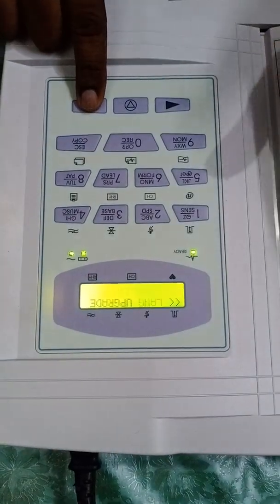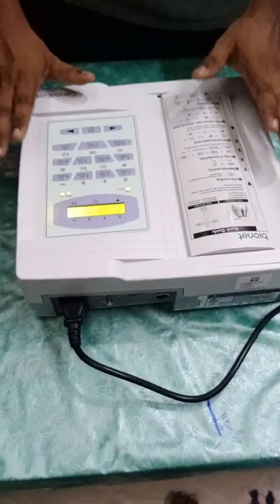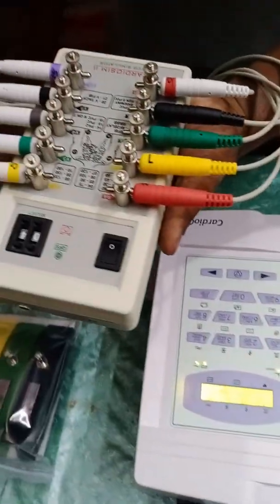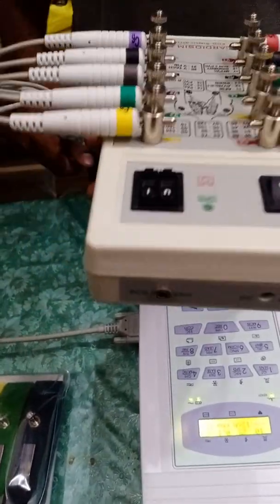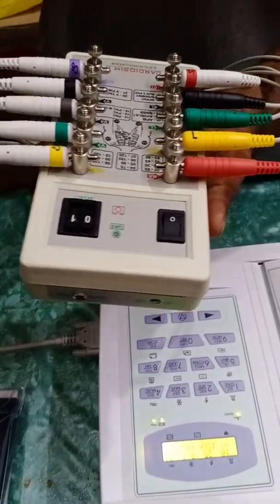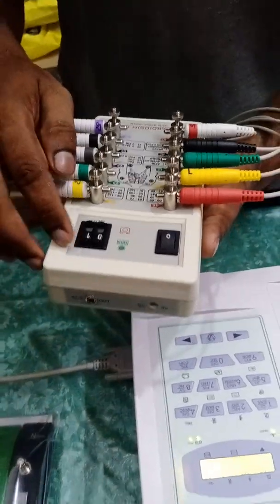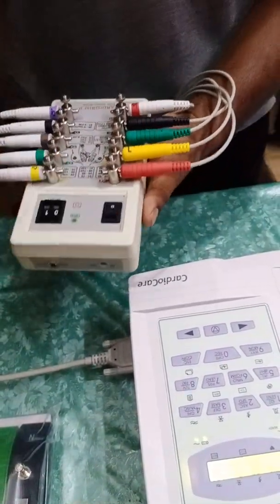The language is set to English. Those are all the settings. To demonstrate the working of the ECG machine, I have used my Cardio Sim 2 ECG simulator — this is the advanced model. With it I can simulate different BPM values, fibrillations, arrhythmias, ventricular tachycardia, and ventricular fibrillations. I have currently set it to 60 BPM and am switching on the machine.